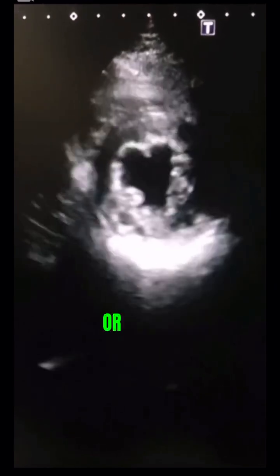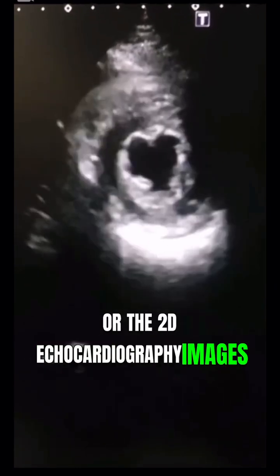Today in this short video, we are going to talk about the formation of ultrasound images or 2D echocardiography images on the display screen.